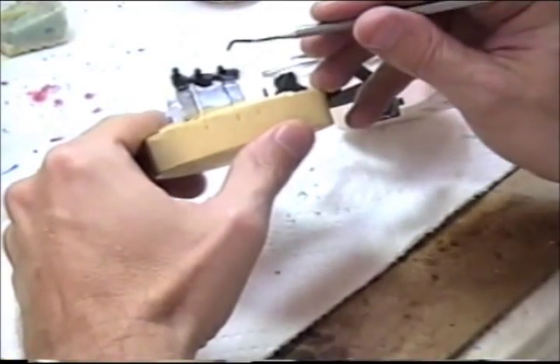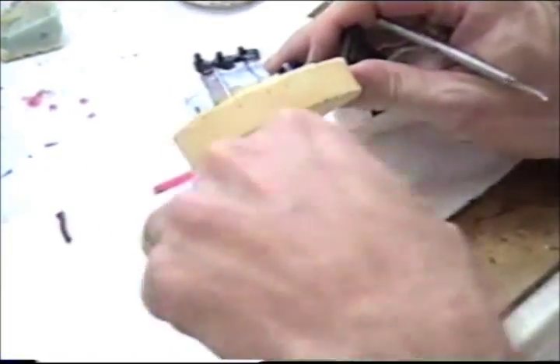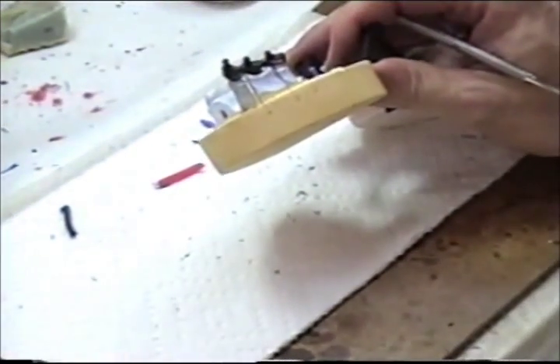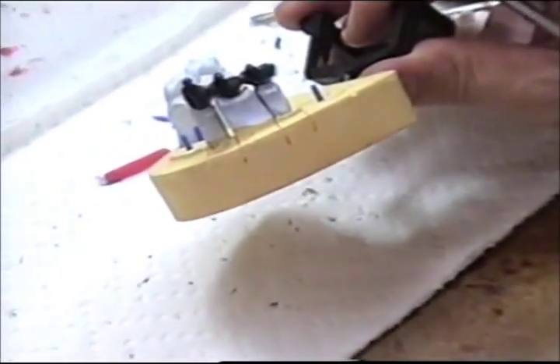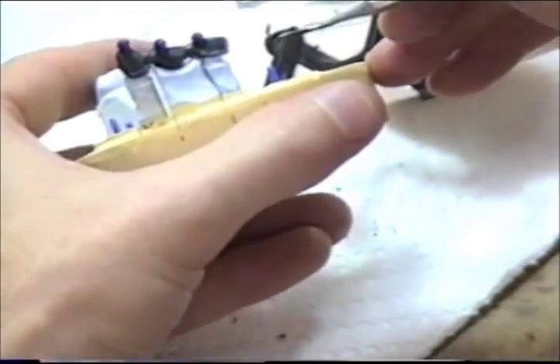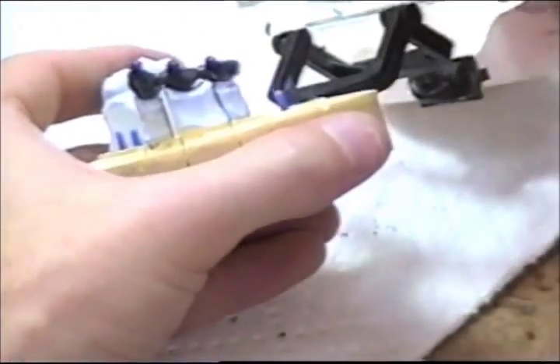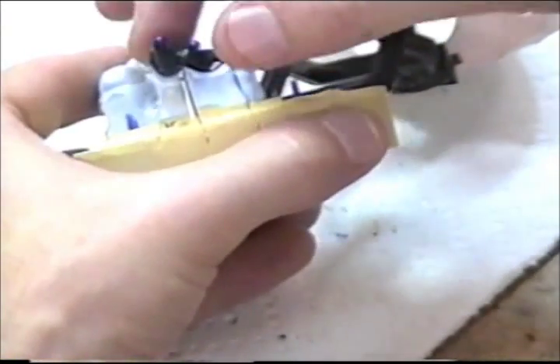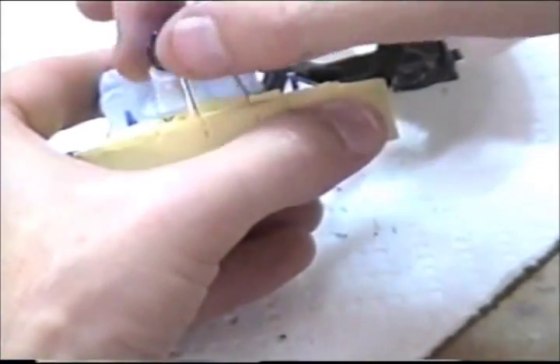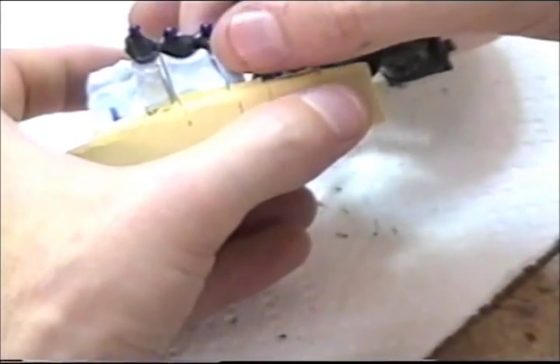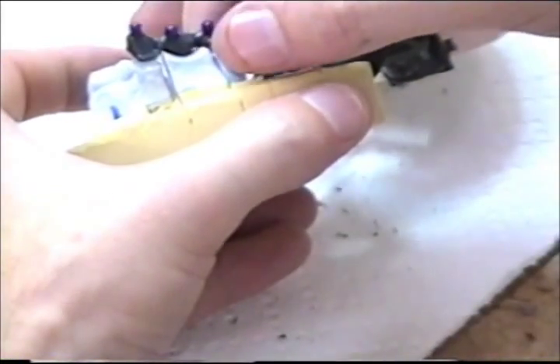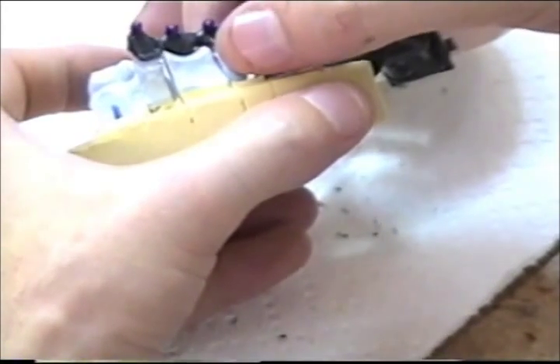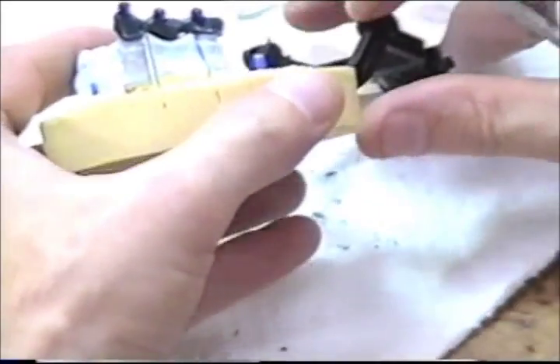Now that the sprues are in place, I'm going to go back to the separation that I made in the contact here. I went ahead and removed the adjacent sections and I want to really make sure that my dies do go down all the way and that they are also mobile without any restrictions.